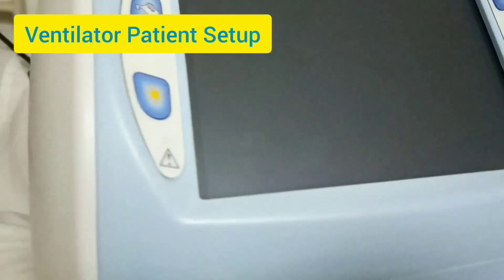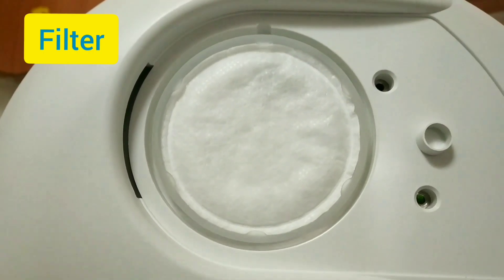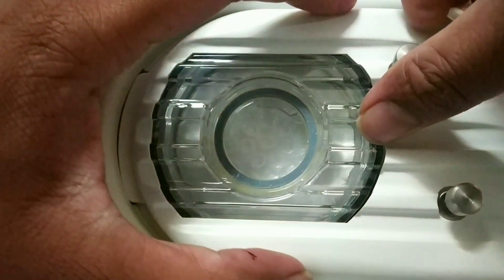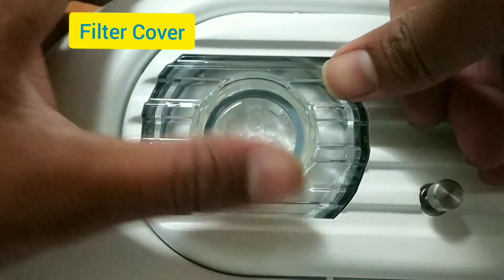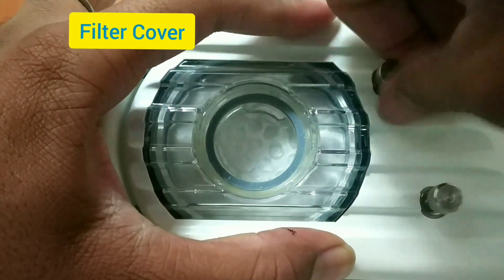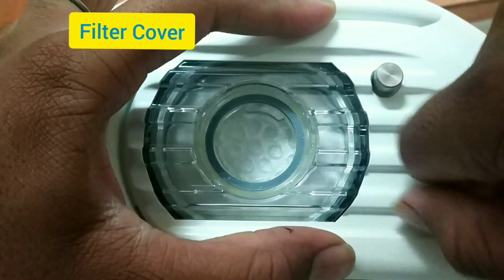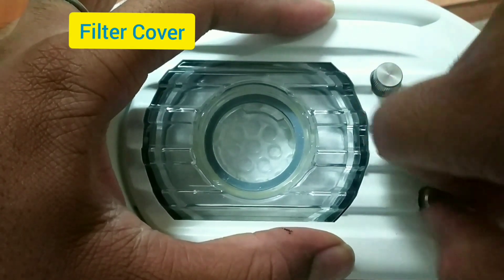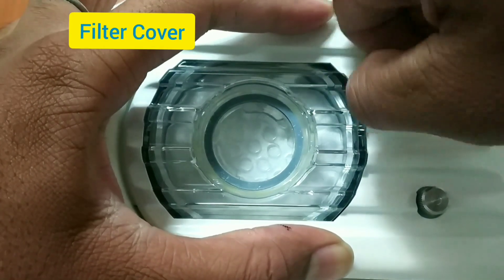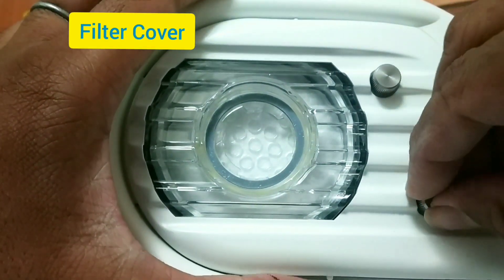Now let's see the patient circuit setup and the ventilator setup. This is the filter, which needs to be cleaned regularly and changed at frequent intervals. This is the filter cover. These are the screws that can be opened and tightened by hand only — no screwdriver needed. Always make sure it is firmly fixed with no gap.